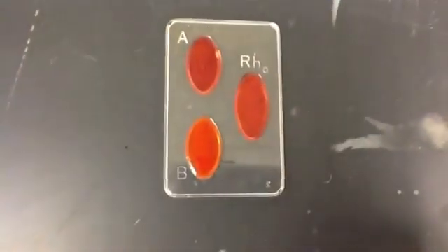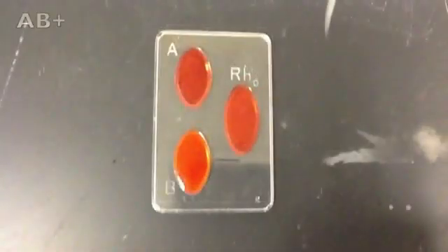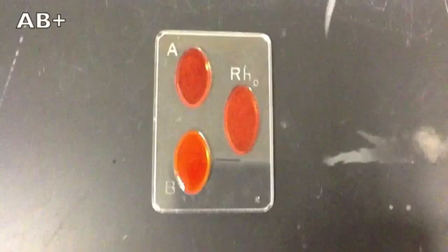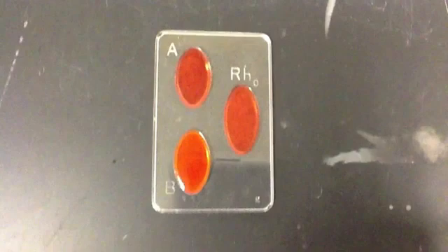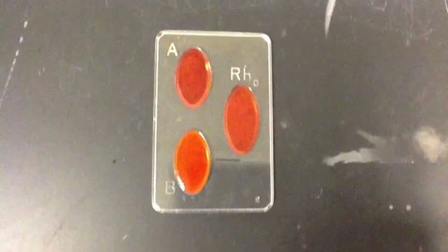The blood type of this individual is AB positive, denoted by the fact that the A-well, B-well, and Rh-well show agglutination. This means that A, B, and Rh antigens are present on the surface of this person's red blood cells.